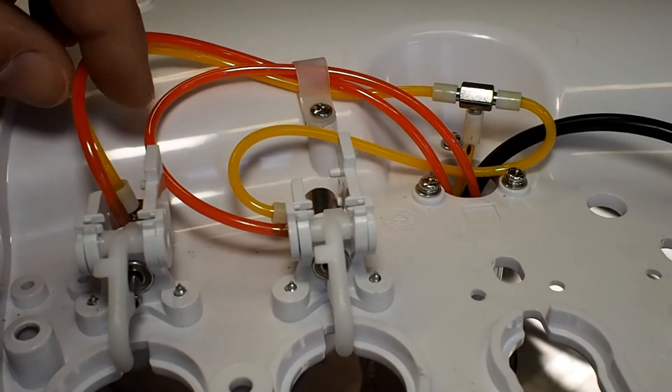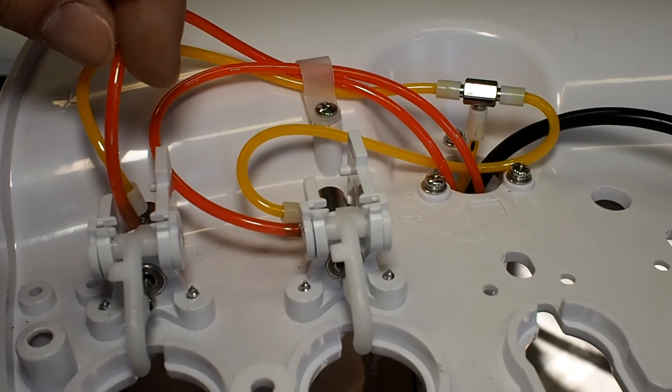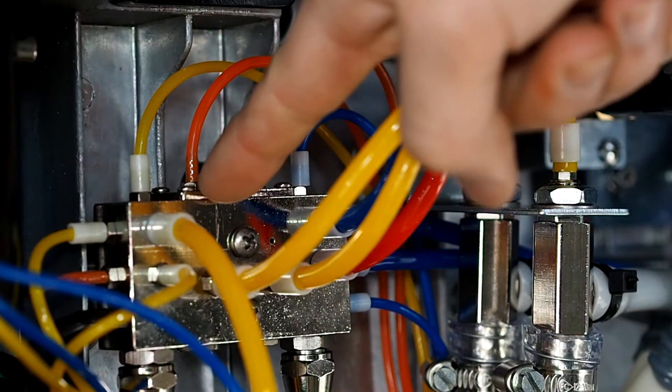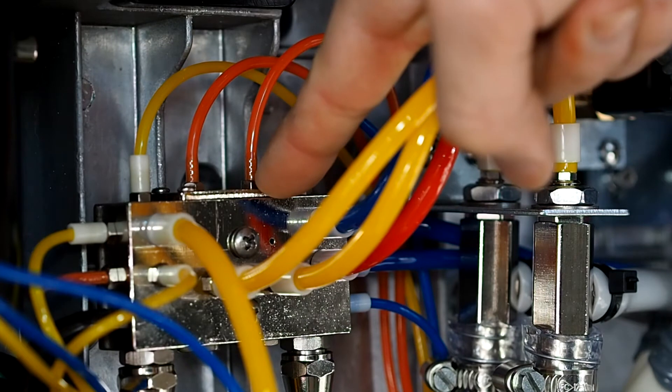When a switch is released, it allows the air flush to pass inside it. Check if the air arrives in the two orange tubes.